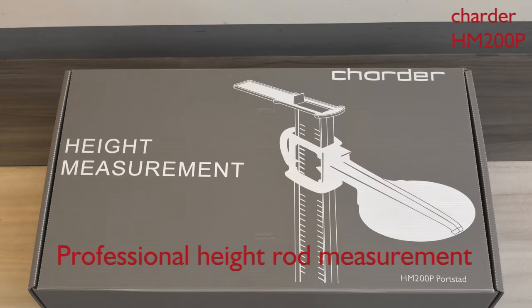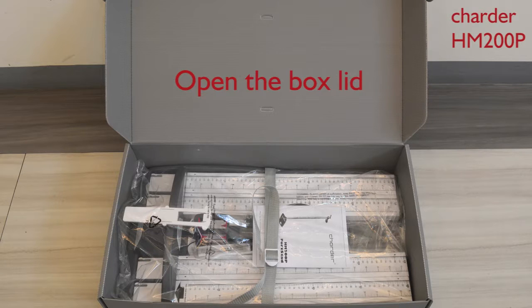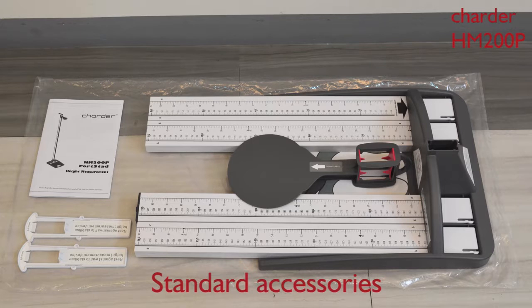Professional height rod works perfect for caregivers with portable design. There are parts packed in one carry box. The most simple accessories of HM200P height rod measurement.